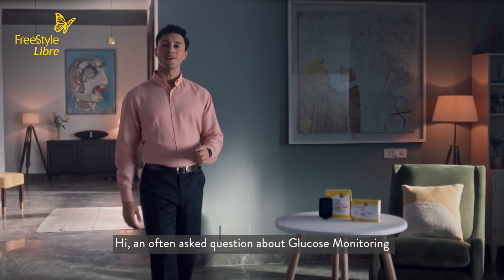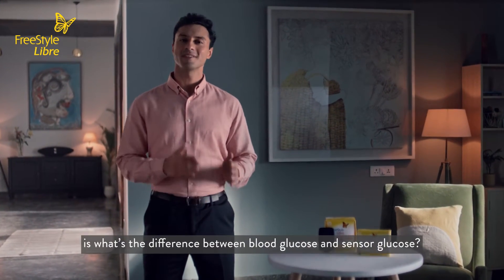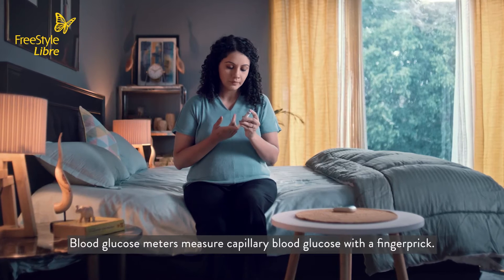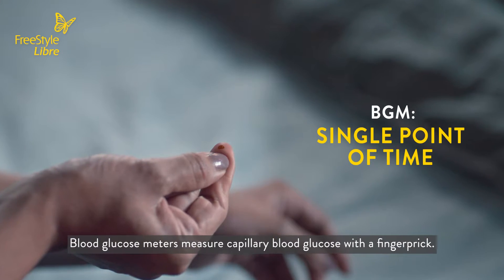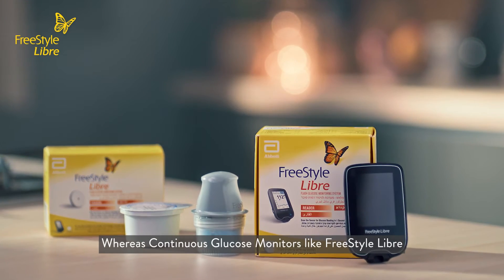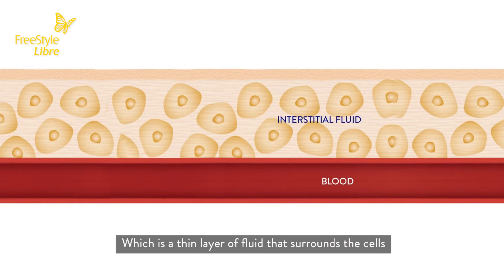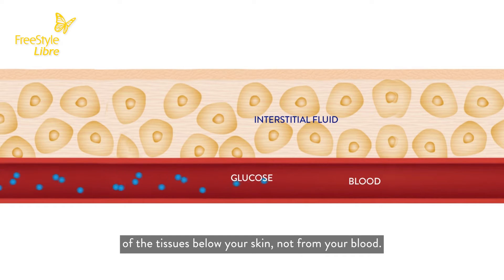Hi. An often asked question about glucose monitoring is: what's the difference between blood glucose and sensor glucose? Blood glucose meters measure capillary blood glucose with a finger prick, whereas continuous glucose monitors like FreeStyle Libre measure glucose levels from the interstitial fluid, which is a thin layer of fluid that surrounds the cells of the tissues below your skin, not from your blood.